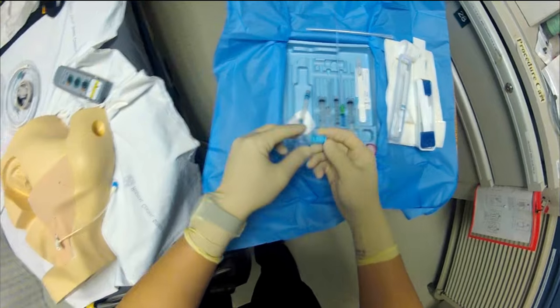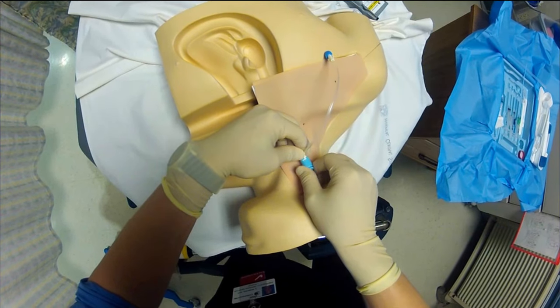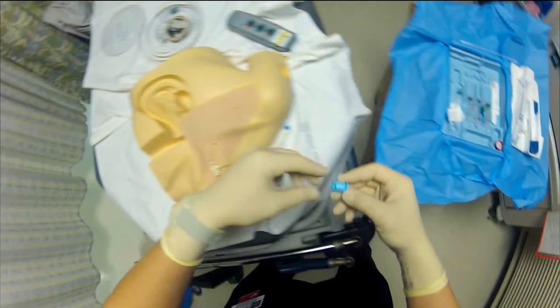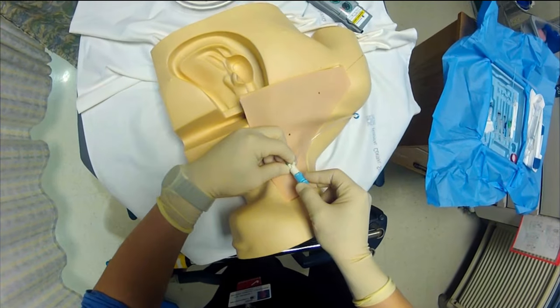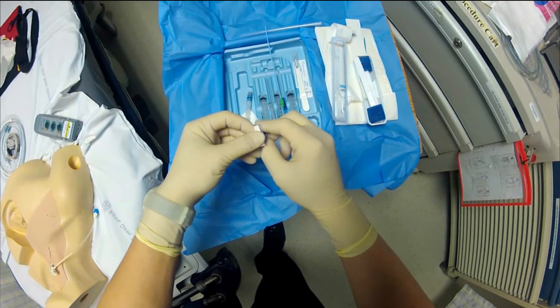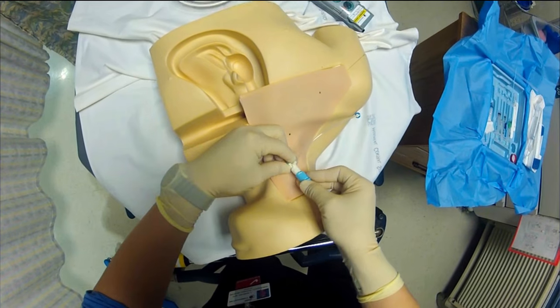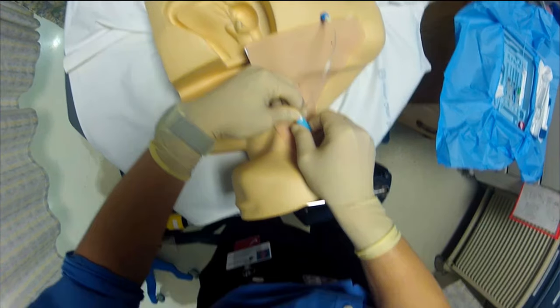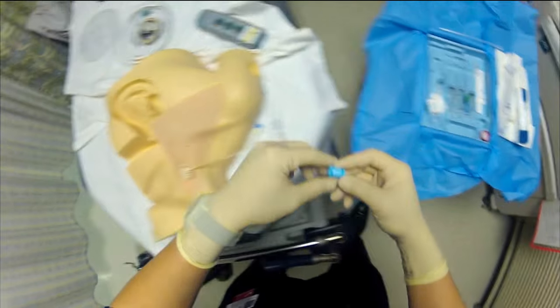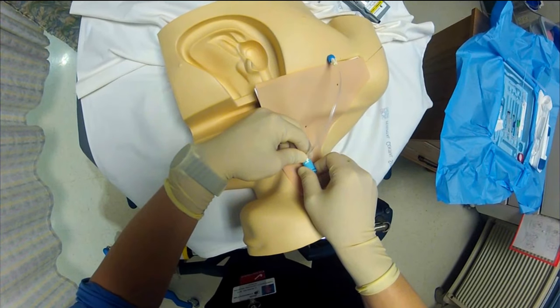This can be done as a two-step procedure: place the venous sheath for an unstable patient who may need pacing but doesn't yet require it. An end cap, packaged separately and still sealed for sterility, fits onto the end of the catheter hub with a locking groove. This protects the top of the venous sheath where you'd thread the wire, maintaining sterility so you can float the wire later if needed.